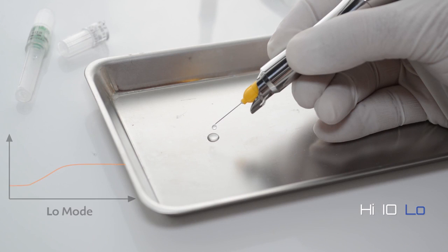In low mode, you have a slow speed of injection for intraligamentary, palatal injections, or for sensitive patients.